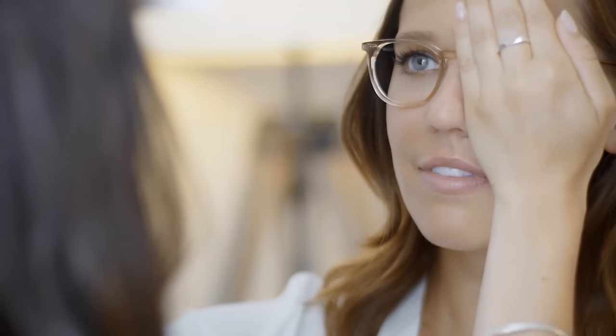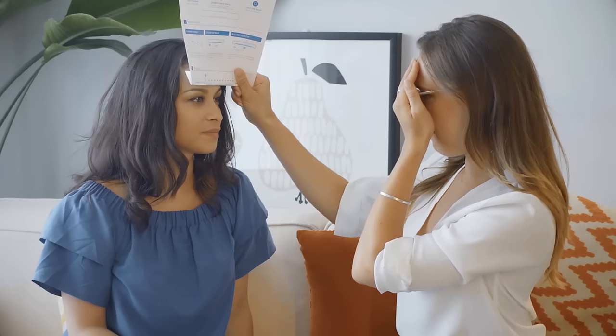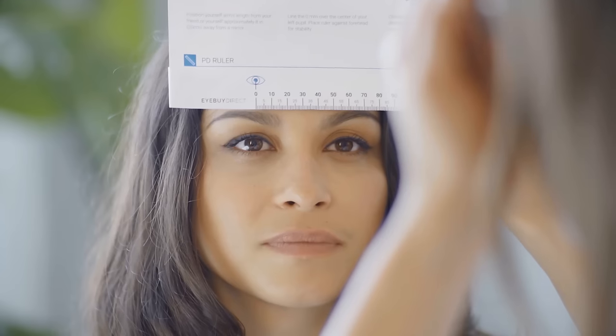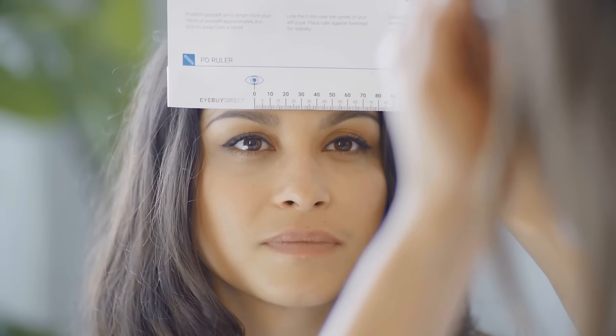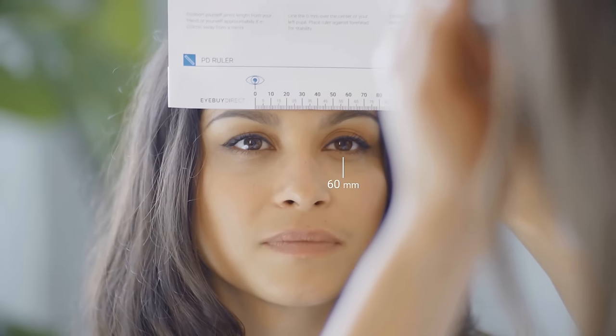Cover your left eye and read the measurement. The number directly over the center of their left pupil is their PD. Repeat this a few times to make sure the reading is accurate and consistent.